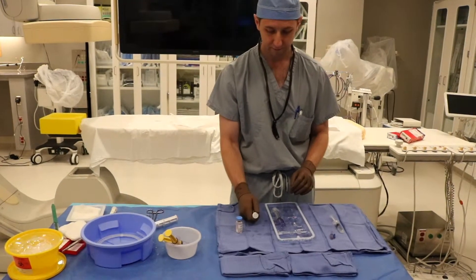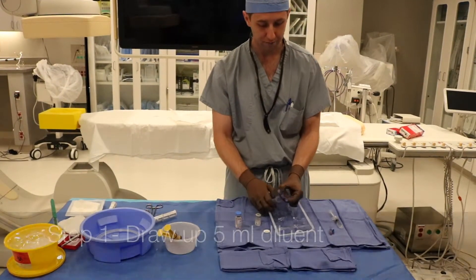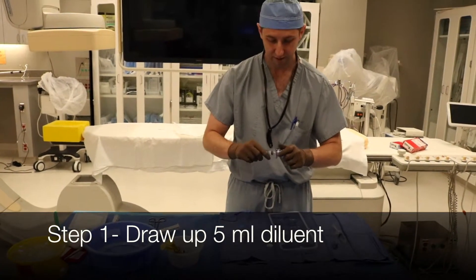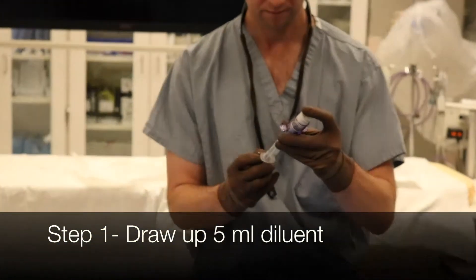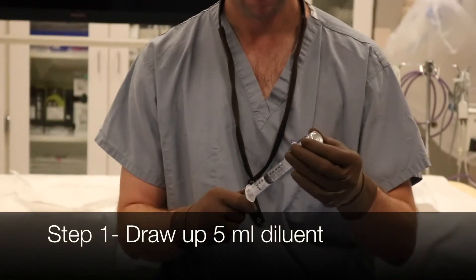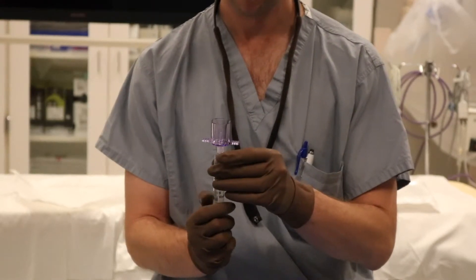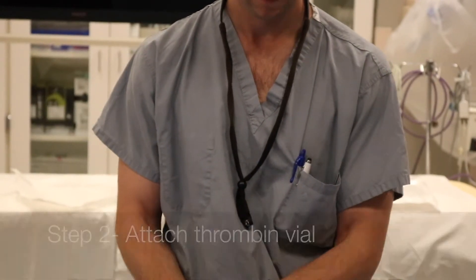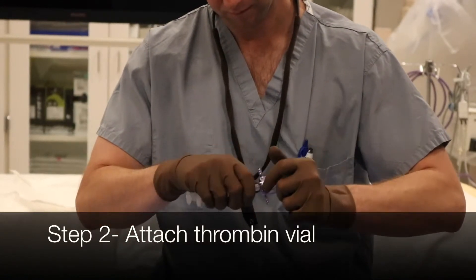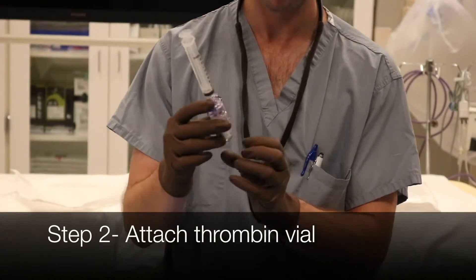So you've got these two — pop the caps. First thing you want to do is draw up your diluent, just go ahead and pop this on. Take your thrombin — the vacuum sucks it in. Don't shake this, just let the thrombin dissolve in.